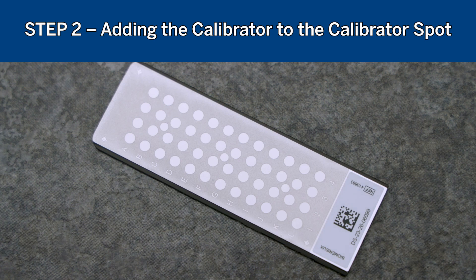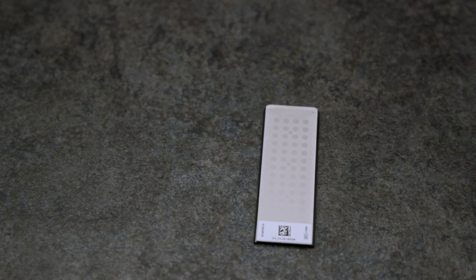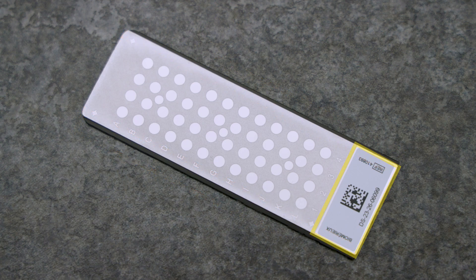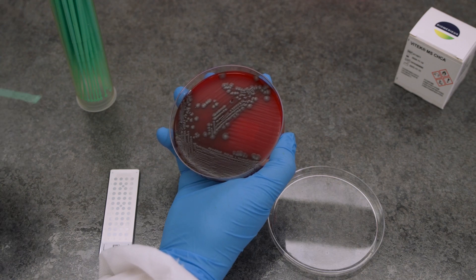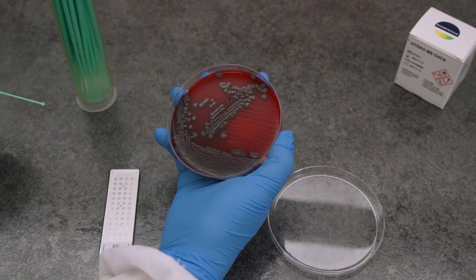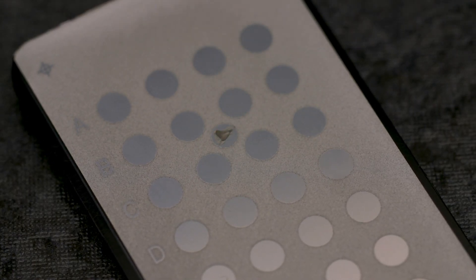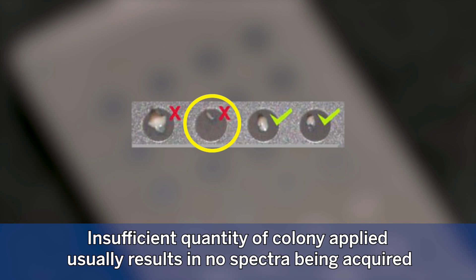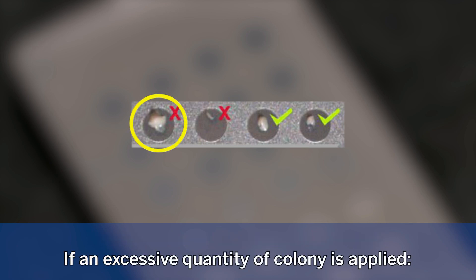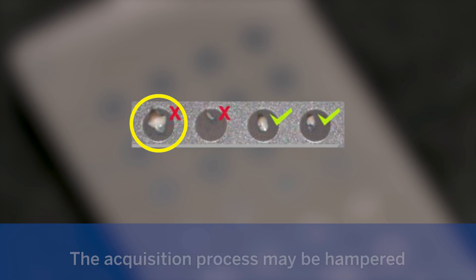Step 2: Adding the calibrator to the calibrator spot. Once all materials are assembled, put on powder-free gloves and place the Vitek MS DS target slide on a flat surface. Handle the slide only by the edges or by the barcode end. Avoid touching the spots on the slide and do not write or mark on the slide. Using a 1 µL loop, pick up part of a suitable colony of fresh E. coli ATCC 8739 calibrator. It is important to avoid picking up agar along with the colony as this may lead to calibration failure. Apply the calibrator strain to the center of the calibrator spot; dabbing twice with the loop works well. Insufficient quantity usually results in no spectra being acquired, while excessive quantity may prevent good crystal formation.